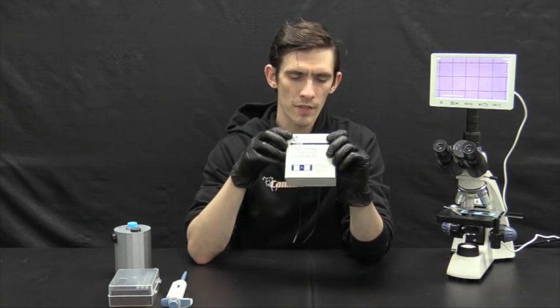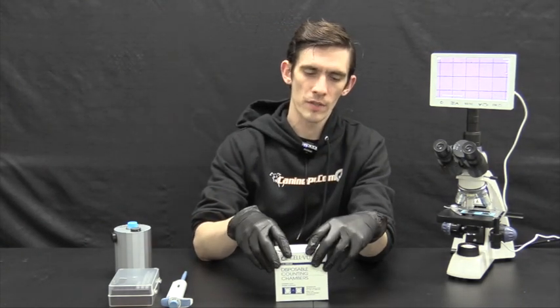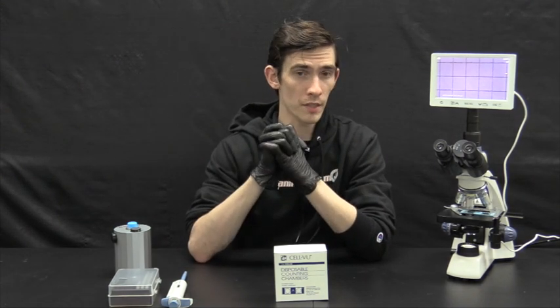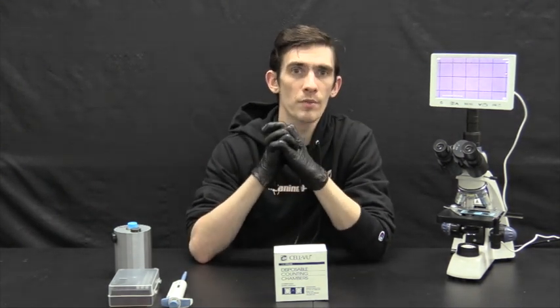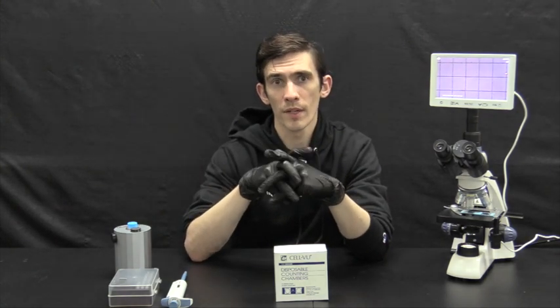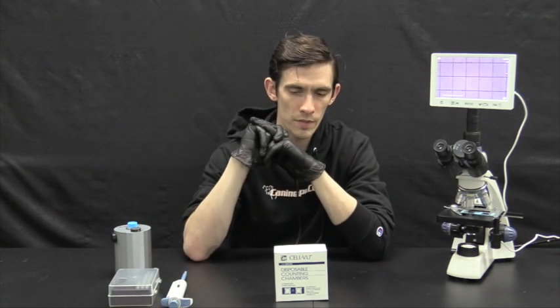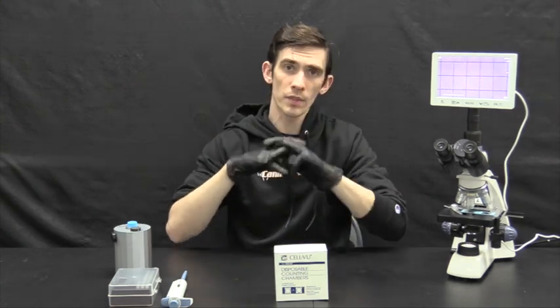Most of those extenders have instructions on how much ratio to add based on the original raw counts. So this is really crucial to confirming that that sample is capable of producing a good pregnancy and then its performance is where you want to be as a business owner or as a small breeder.